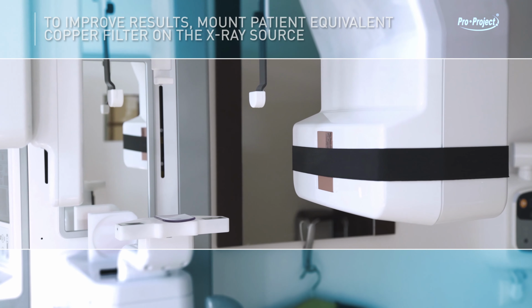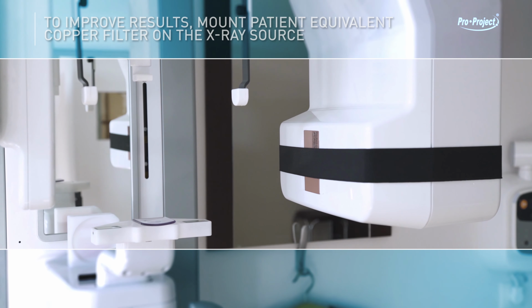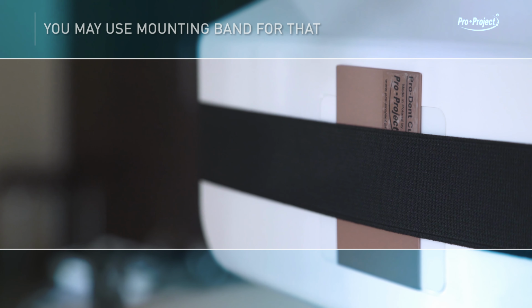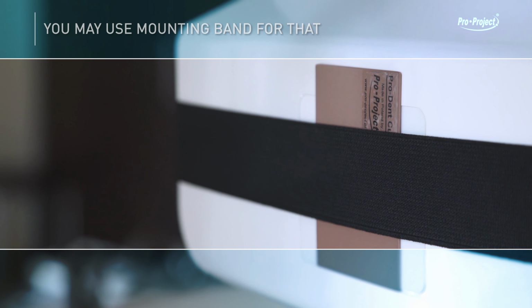To improve results, mount the patient equivalent copper filter on the X-ray source. You may use mounting band for that. Cephalometric unit.